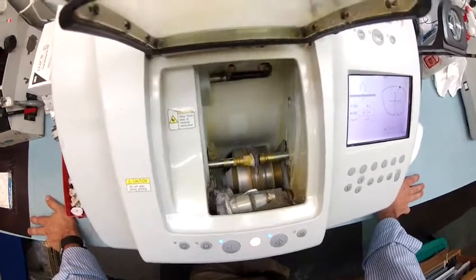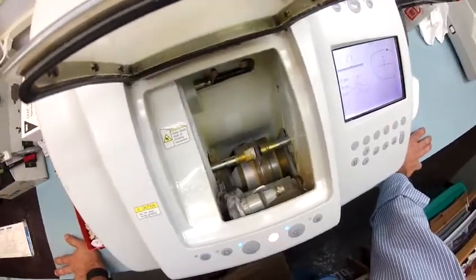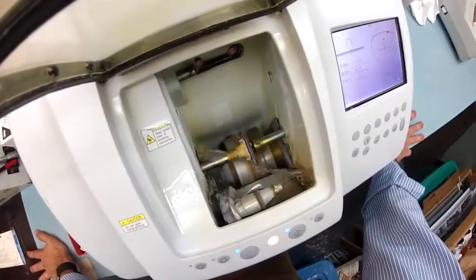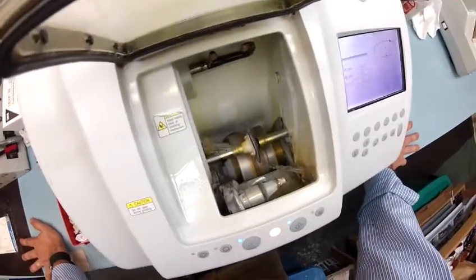This is the final stage of the left lens being cut. The water jets will kick in in just a moment to clean any optical debris. I'm going to put more on there as soon as it comes out, but I just want the machine to know it's trying. There you go — feel good about yourself, little $30,000 machine.